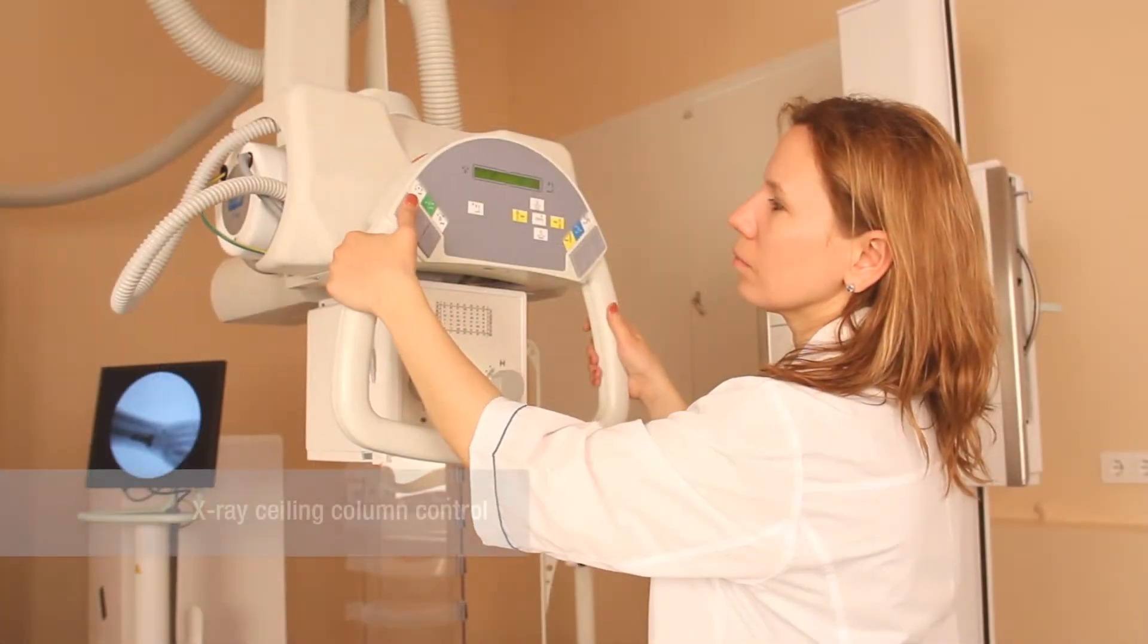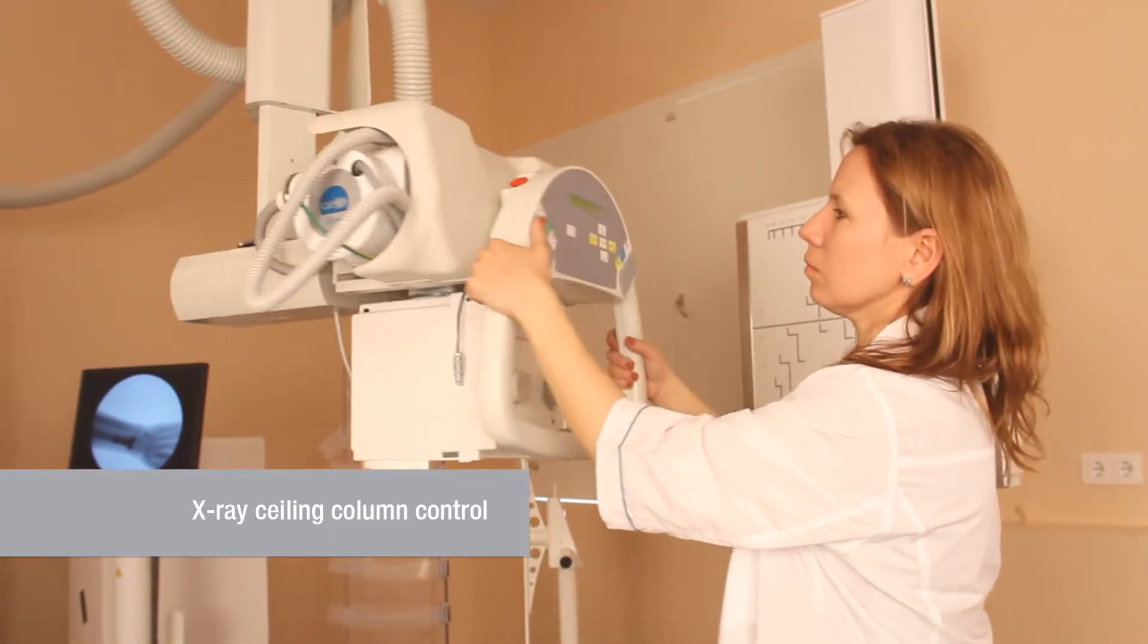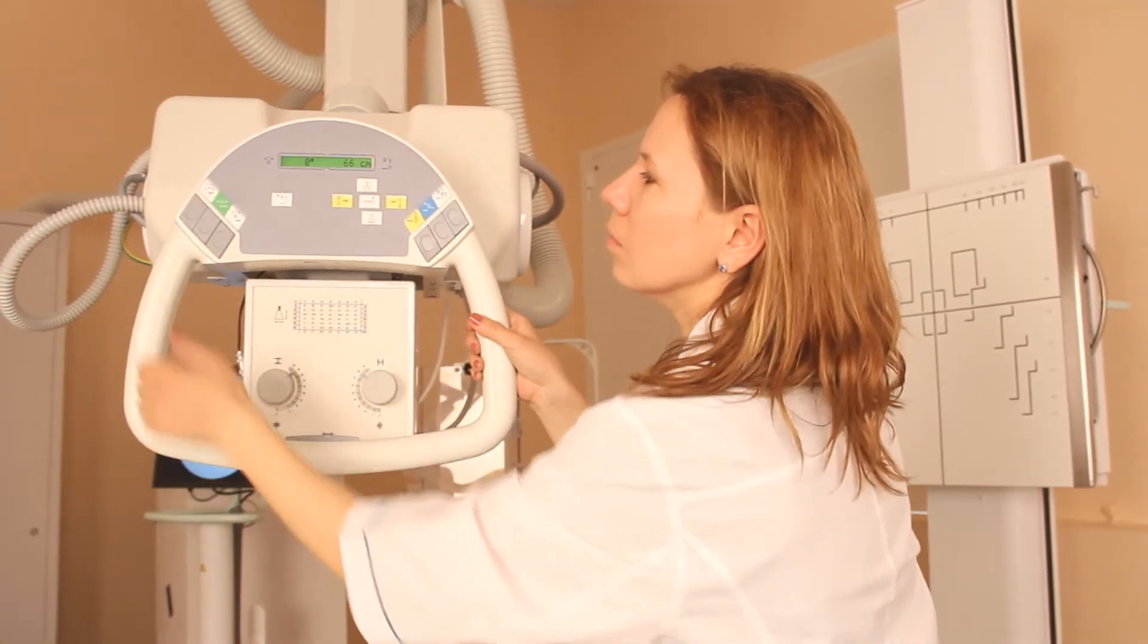The buttons of the column control panel help adjusting the tube position at any angle. The X-ray tube may be rotated along its vertical axis.